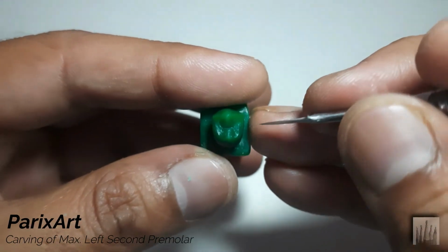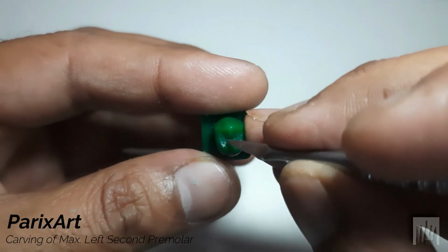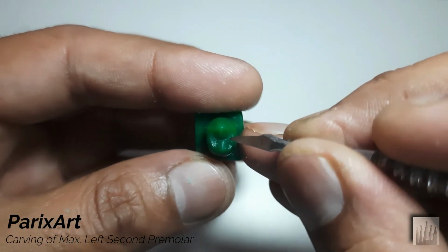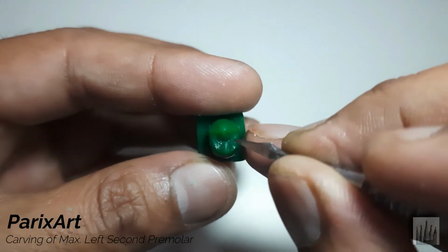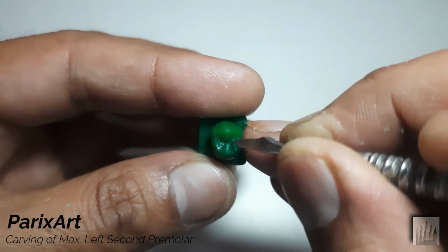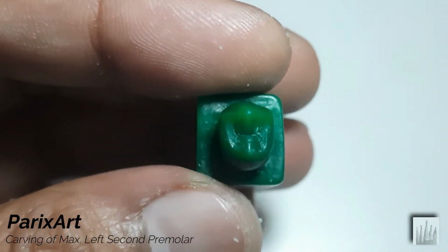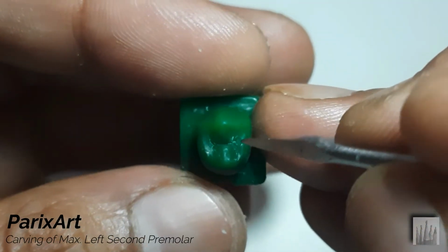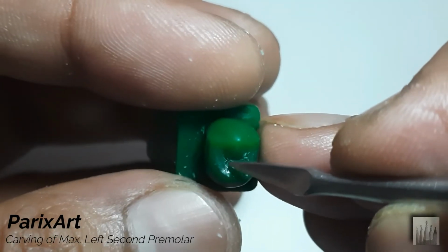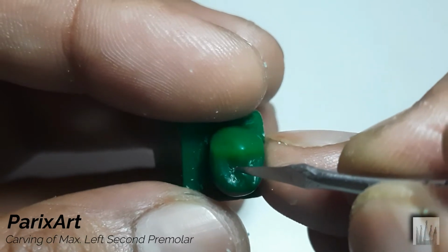Okay, now we need to make multiple fissures extending from central groove. Use light sharp carver. Let's zoom in for a better view. Carve in these grooves to make them slightly defined and widened. Use the tip of thin and light carver.